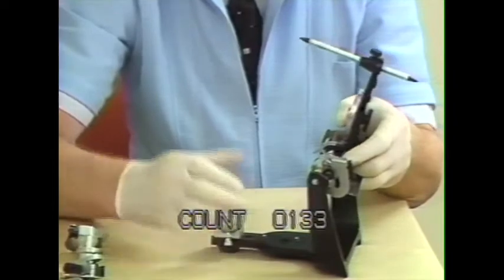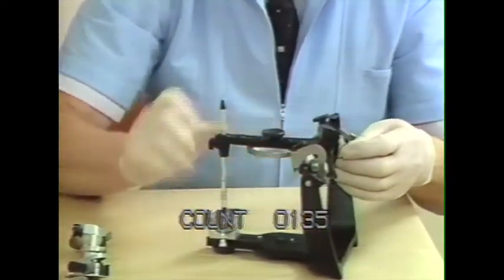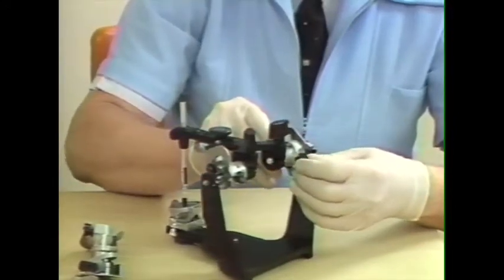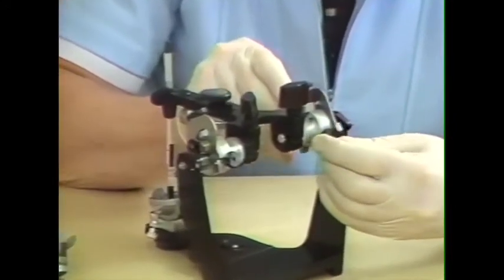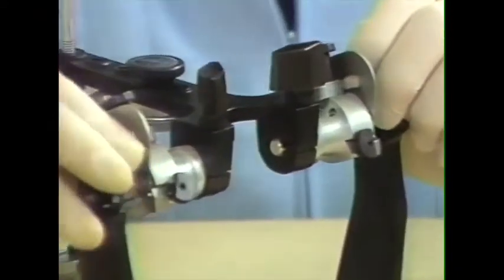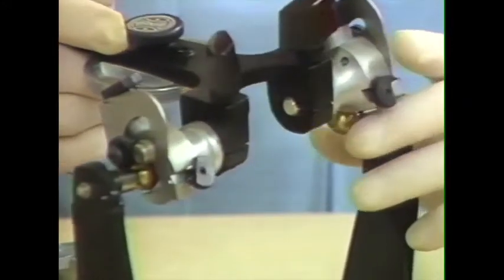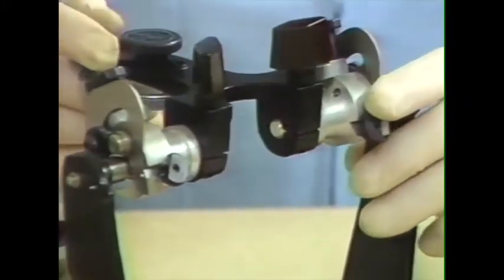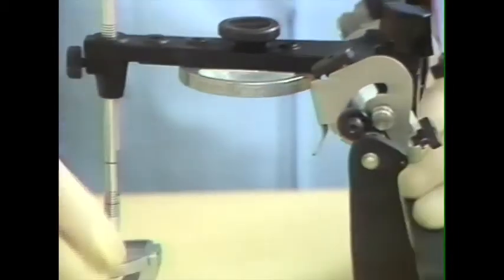Secondly, the members of this articulator will separate. And to separate these, there are these screws, these little cams in the back, and we can unlock the articulator and the members will come apart, which is a nice feature for restorative dentistry. Fixed restorative, like this feature very much.